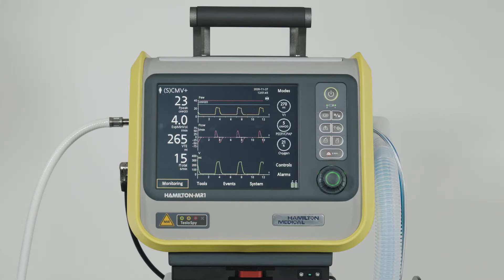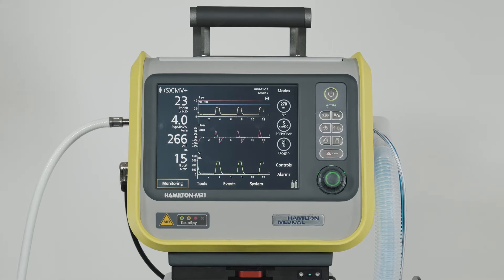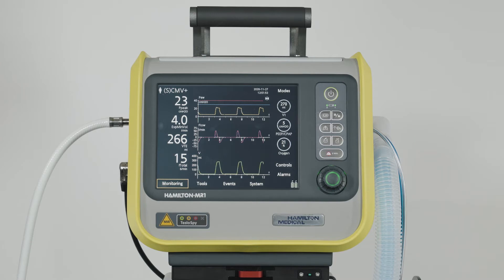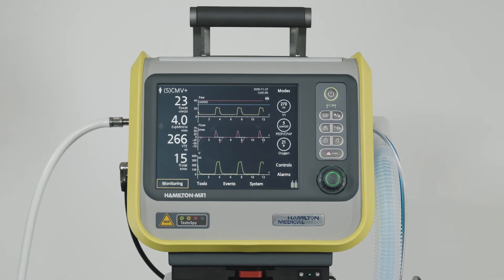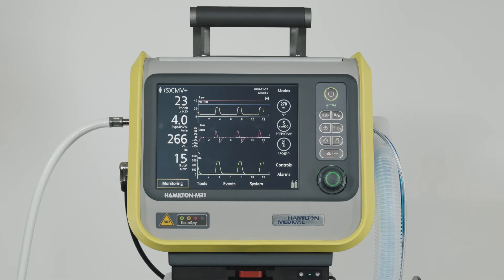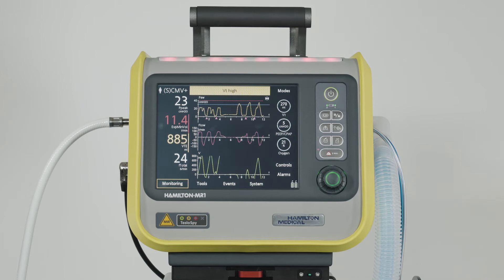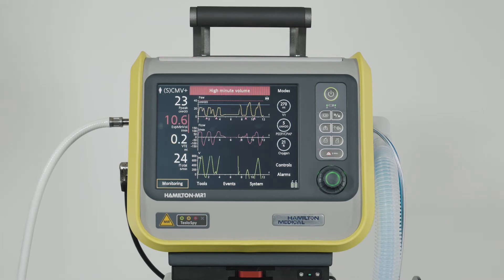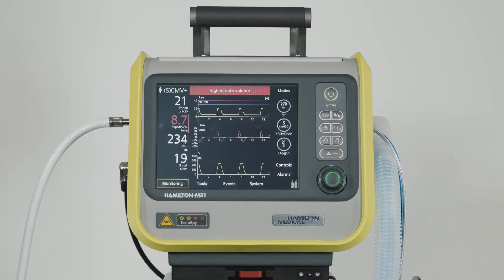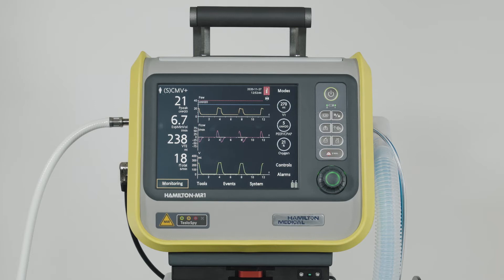The parameters shown here — peak pressure, expiratory minute volume, tidal volume, and total respiratory rate — are our factory defaults. Normally these numerical parameters are white, but if they are affected by an alarm condition, their color will change. For a medium priority alarm, the parameter will be displayed in yellow, and for a high priority alarm, it is displayed in red. When the alarm resets, the corresponding MMP turns white again.